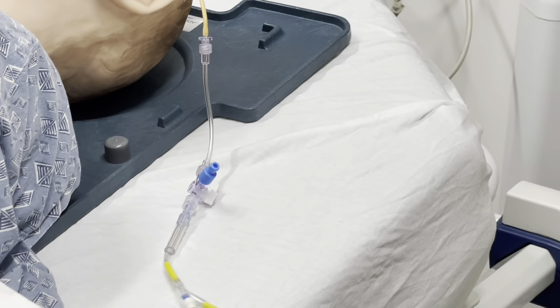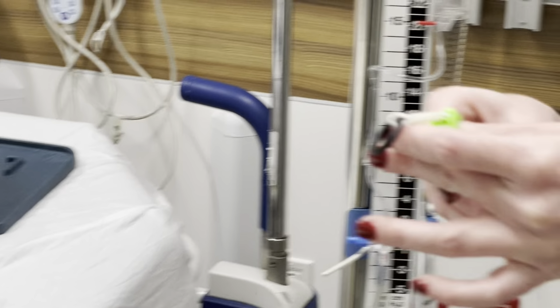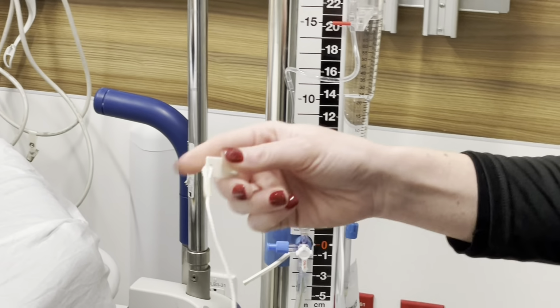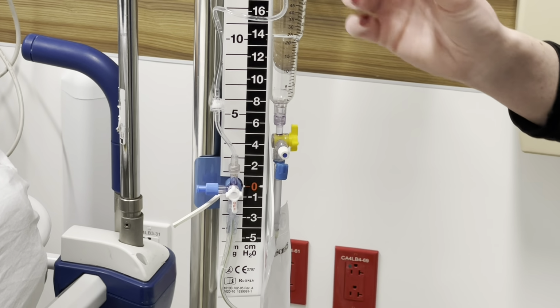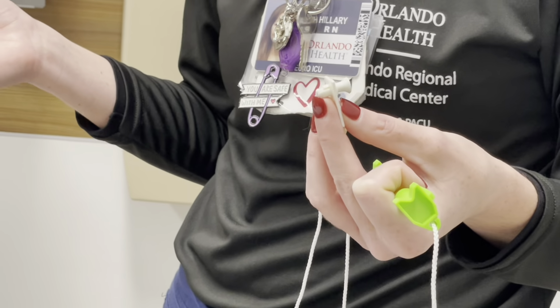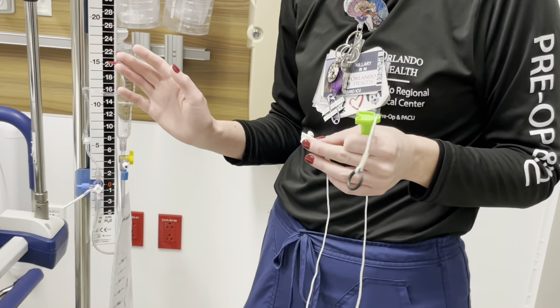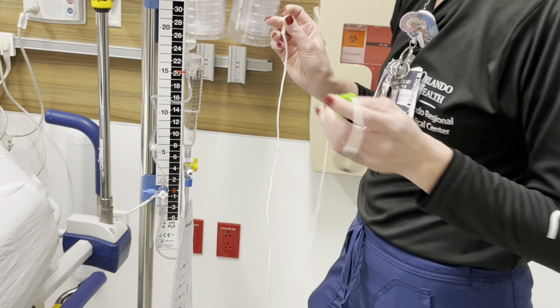So the next thing too is that in this kit with your EVD, it's going to come with your level. Sometimes the level will be attached to the pole already. Sometimes it will come in the bag. Sometimes you will have to look for one, but it is important to have a level. If you're dealing with a subdural or an epidural drain, they don't need to be that level, they don't need to be transduced. Typically, you can take the levels. If for some reason they do have level orders, keep your level and follow instructions. But typically, keeping your patient level is something for the EVD.